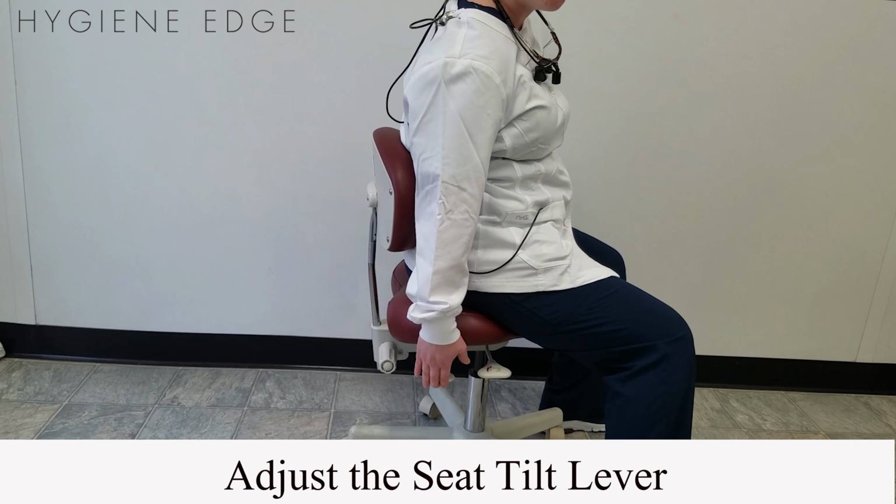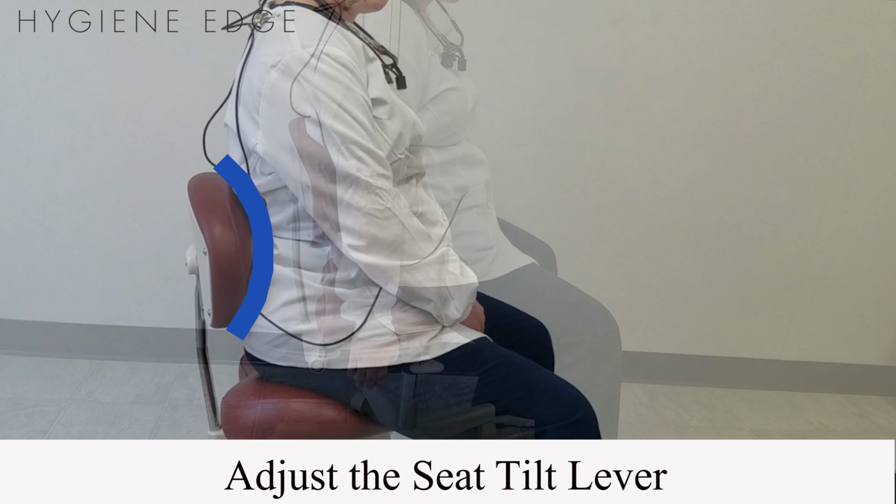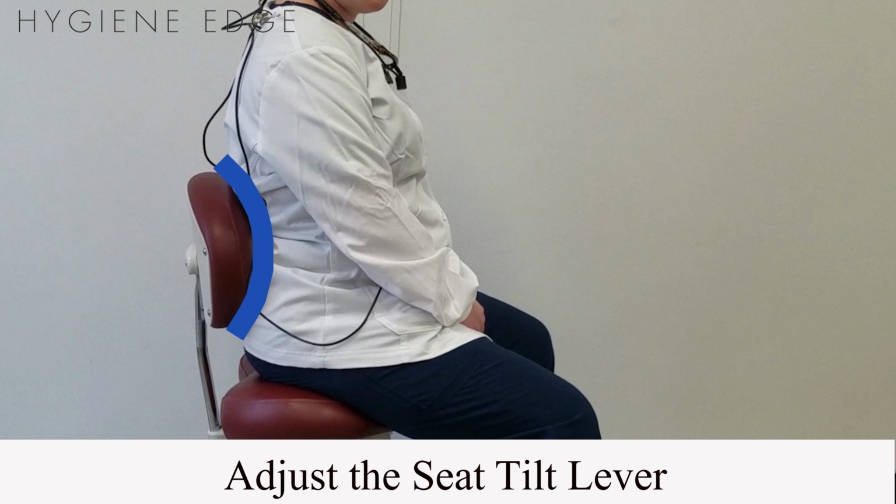Position the seat tilt lever so that the back of the seat is about 1 inch higher than the front of the seat. This helps keep the natural curvature in the lower back.